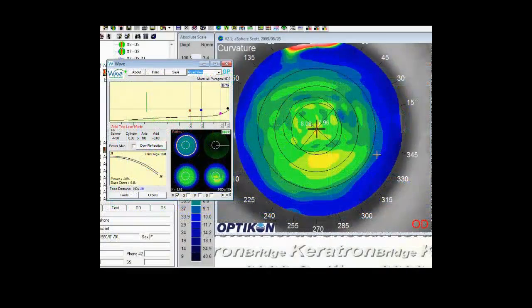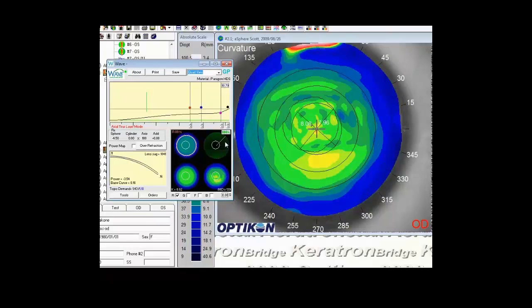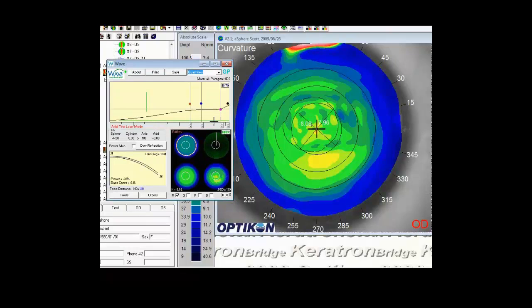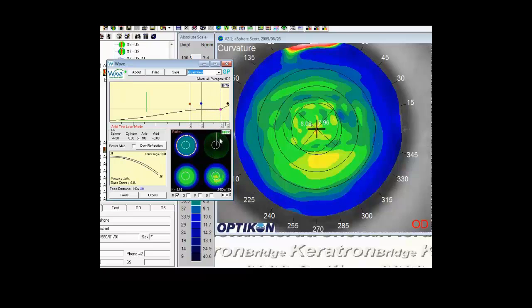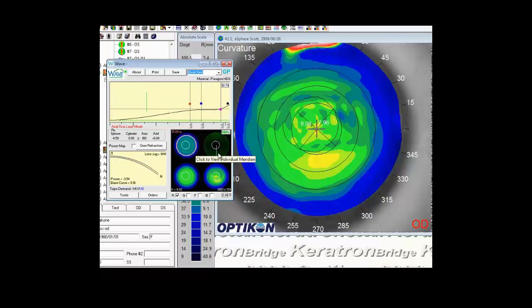Looking at this cornea, it appears to be a good candidate for an RSYM design contact lens. A good general rule of thumb is to spin the radial around and check each meridian to ensure we don't have too much edge lift in any one meridian. You'll notice the deviation between meridians stays within 15 to 20 microns, so an RSYM should be a fairly comfortable lens for this patient.